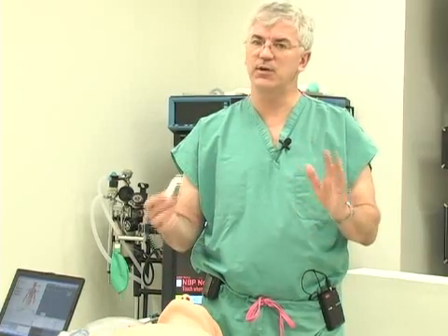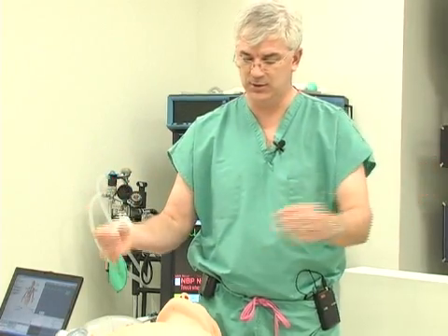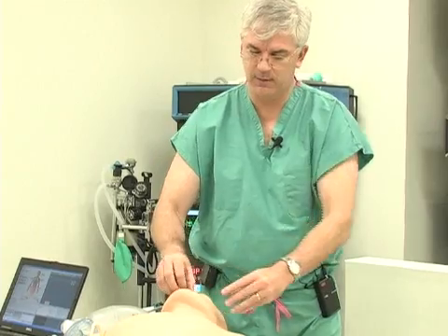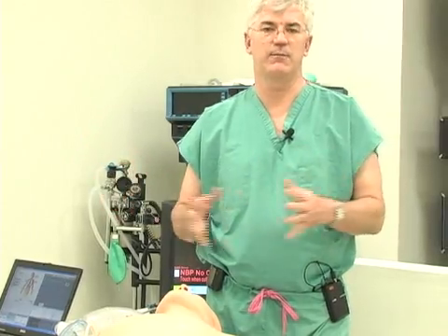You're going to put the oral airway in a patient who is pretty much obtunded and starting to obstruct, because this device is quite stimulating as anyone who's worked in anesthesia knows. Put the oral airway in and make sure you're lifting the tongue up. That's really all you need to cover for the nasal airway and the oral airway, because these are things anesthesiologists know how to do.